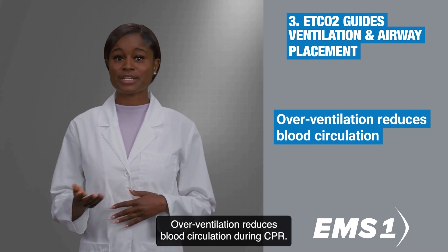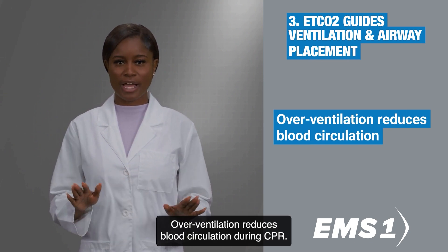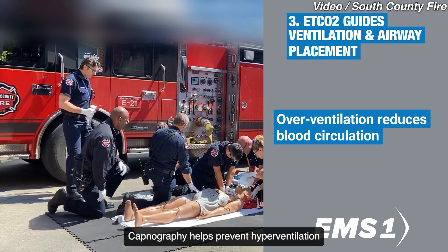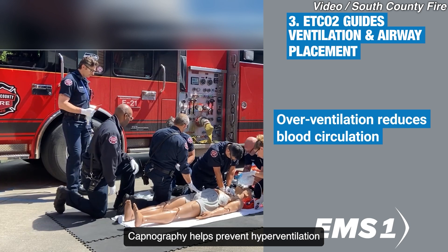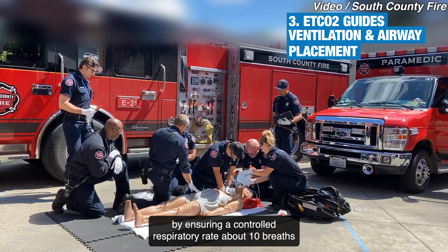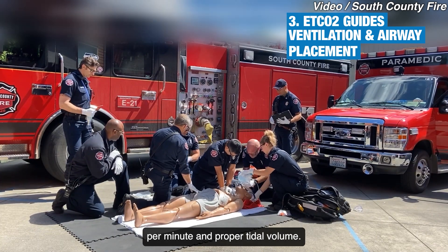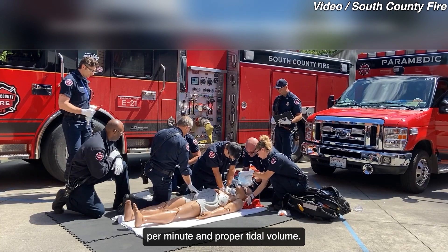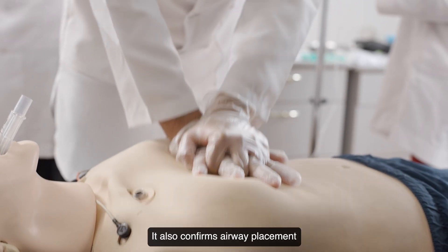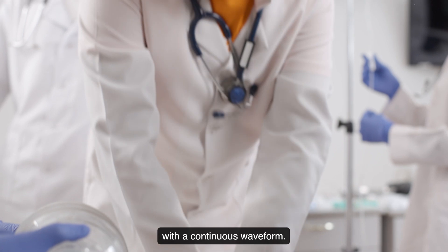Overventilation reduces blood circulation during CPR. Capnography helps prevent hyperventilation by ensuring a controlled respiratory rate of about 10 breaths per minute and proper tidal volume. It also confirms airway placement with a continuous waveform.